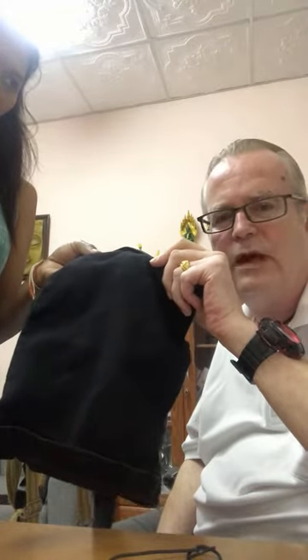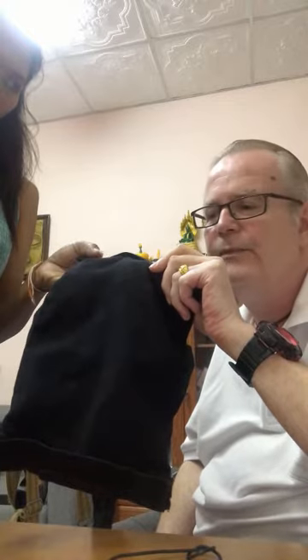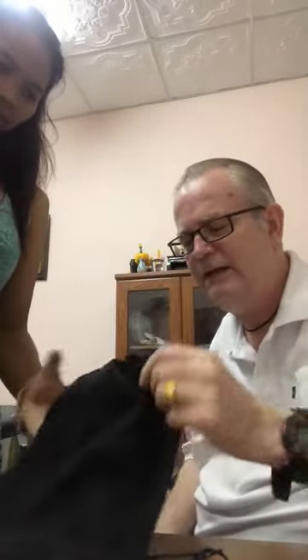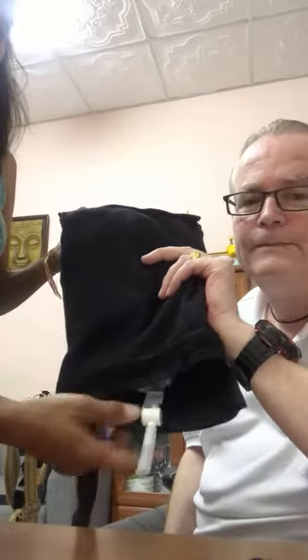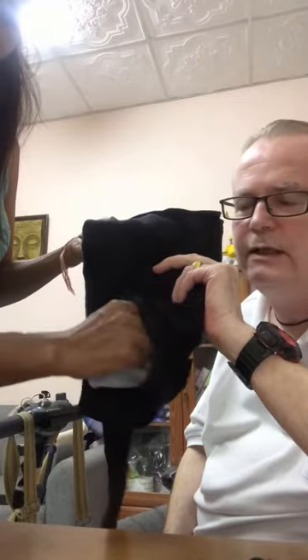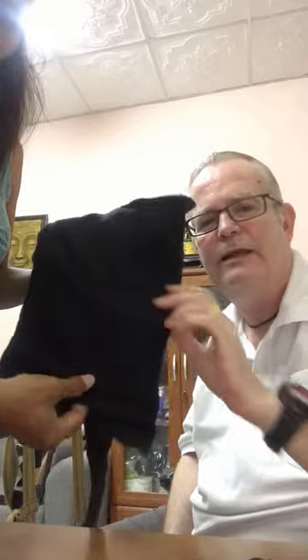What I'll do is take out my own bag that I'm using right now — I hope I don't offend anybody. This bag is at least one and a half years old. I alternate two bags and use it 24/7, permanently using my catheter. The quality is still actually really sound. You can see the hook and loop system after about a year and a half — you simply empty it out, put the bag back in, close it up, and I put it back on my scooter.